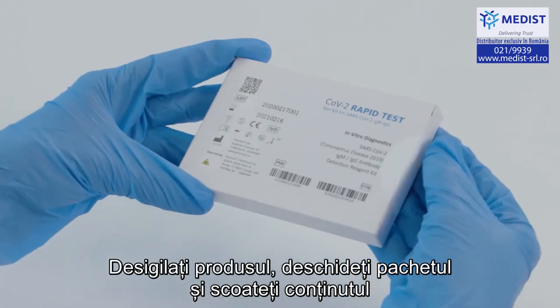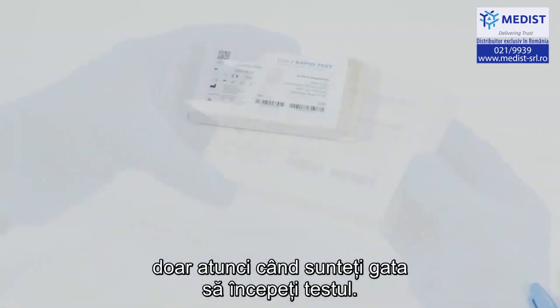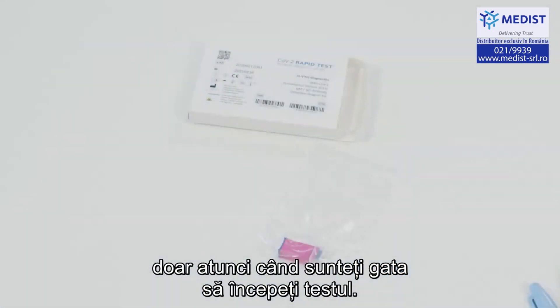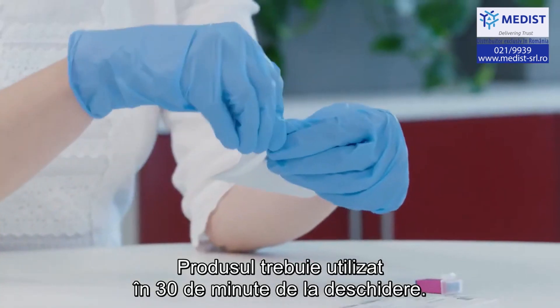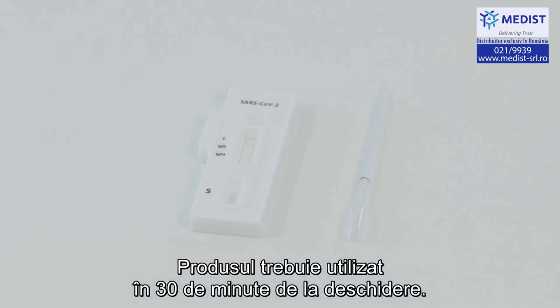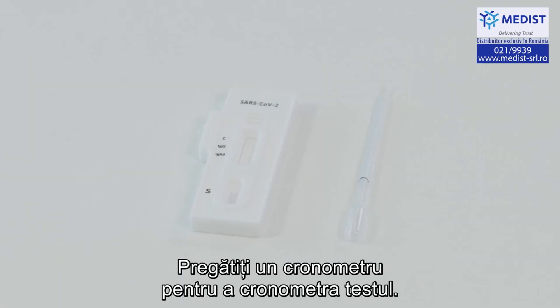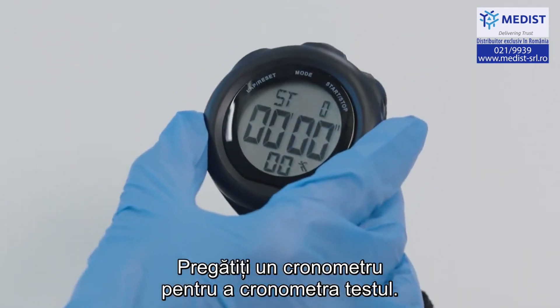Unbox the product, open the packet and remove the contents only when you are ready to start the test. The product must be used within 30 minutes of opening. Prepare a stopwatch to time the test.